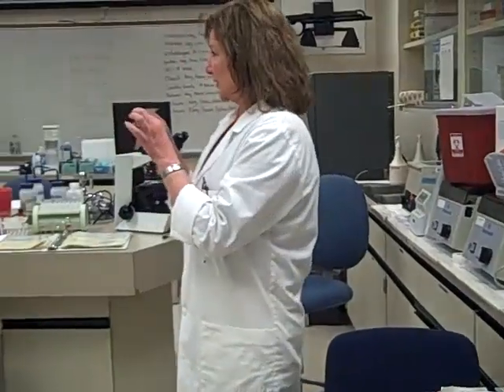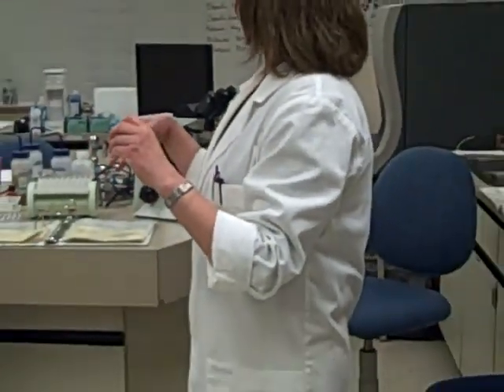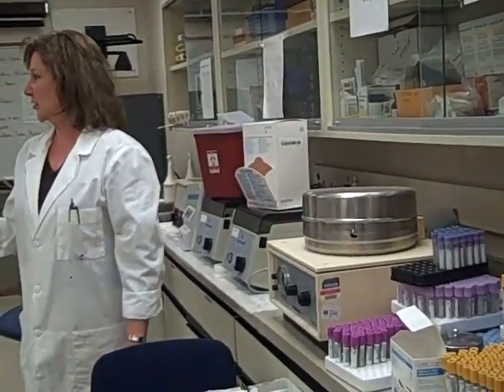With a body fluid, the slide you're going to do your differential on is different than a blood smear. You can see that we have a little concentrated cell button in that circle there, because normally body fluid cell counts are very low. If we just made a regular blood smear, we'd probably have to make about 40 in order to get 100 cells. So we have this neat little device called a cytospin that will concentrate your cell button for you.